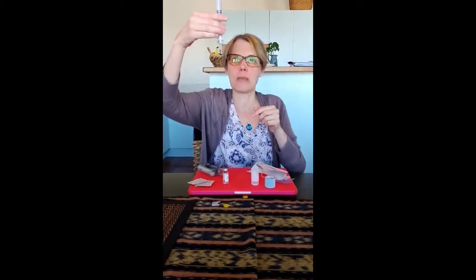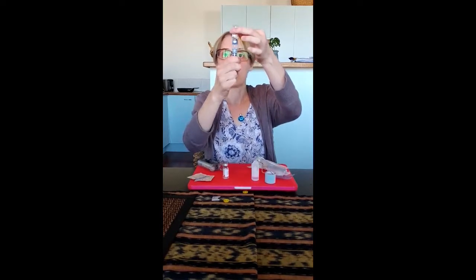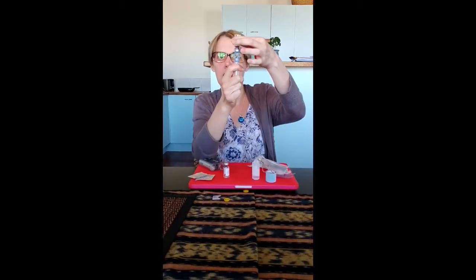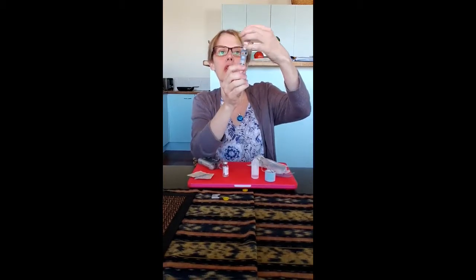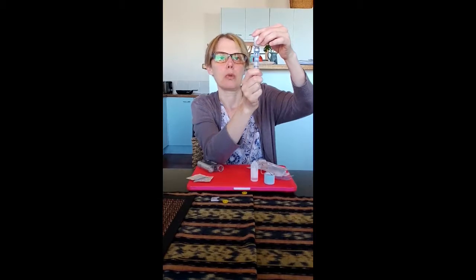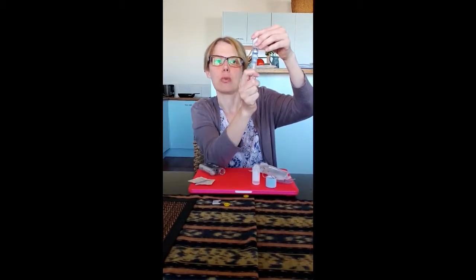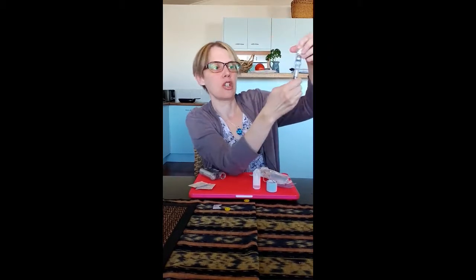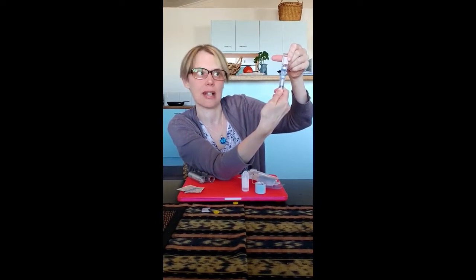The Solu-Cortef is very nicely dissolved — there are no clumps, no white flakes at all. I don't need to push any air in or anything; I just very gently pull down the contents from the Solu-Cortef vial until it's empty — no needle at all. That's the first one finished, then I go into the second one and pull down from that. One-to-one means two ml of water to 200mg of hydrocortisone — a total of 200mg, which is enough for six days.